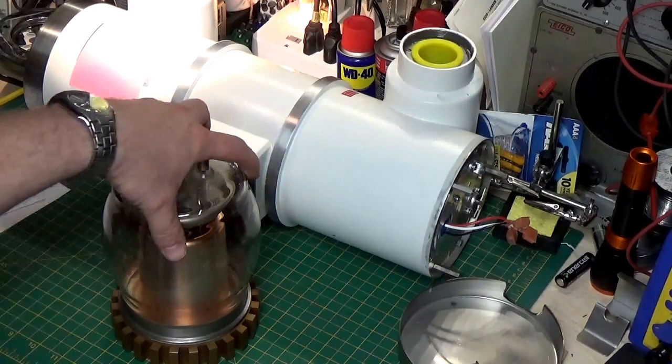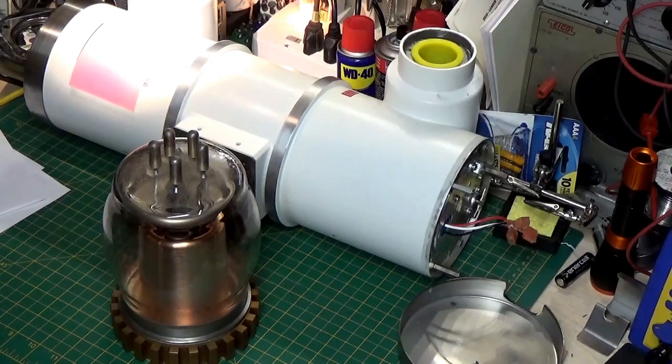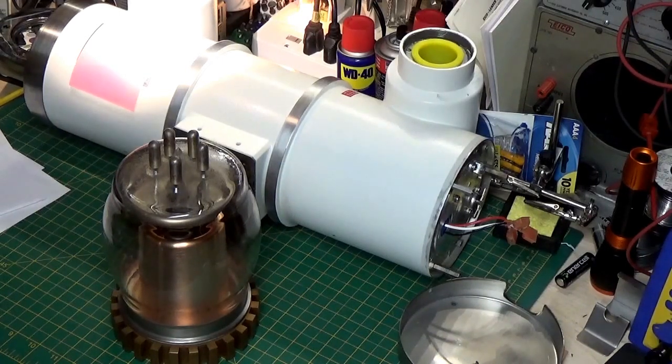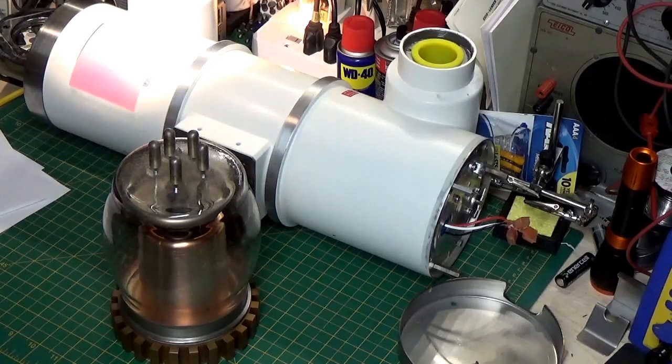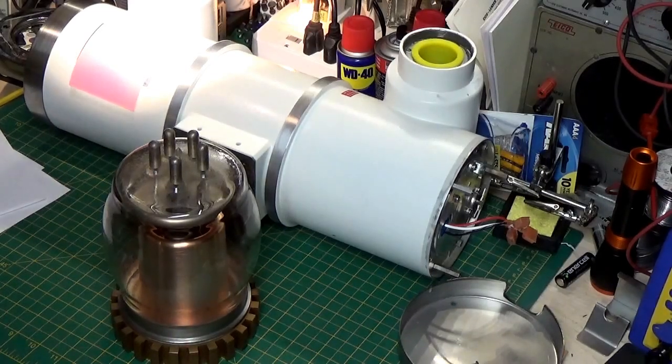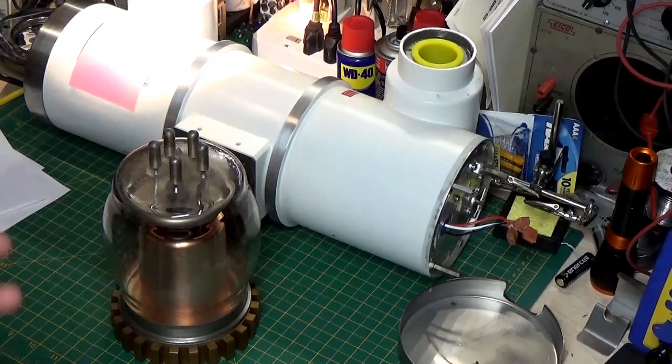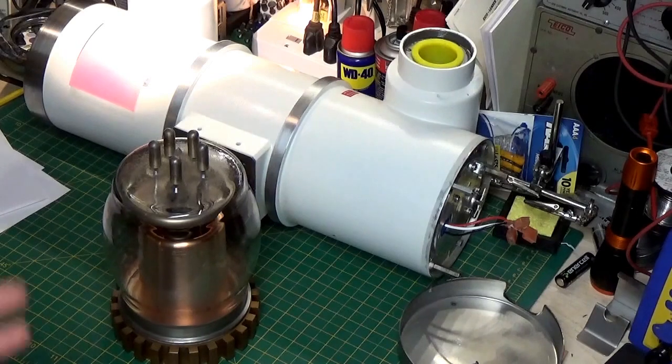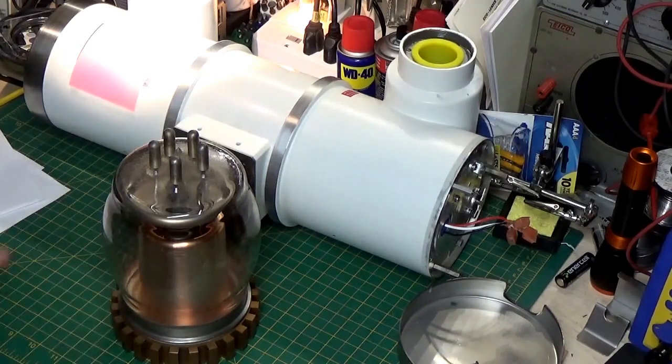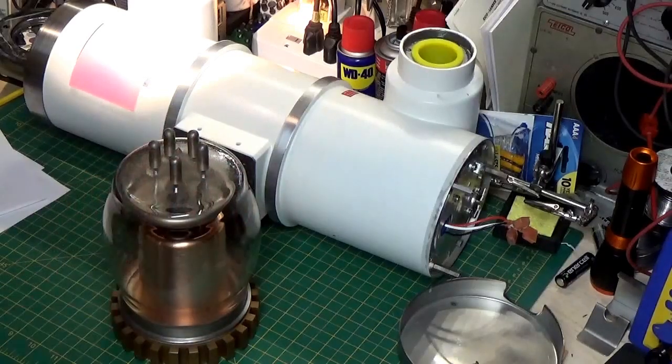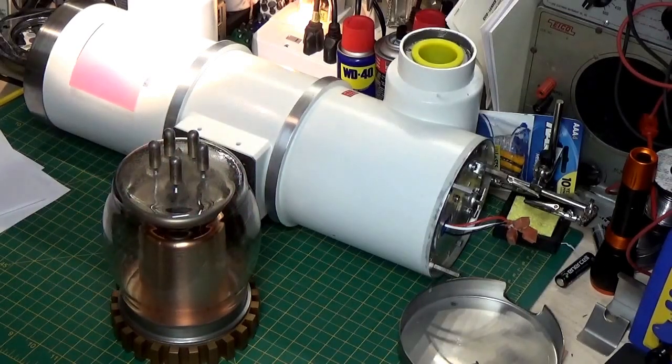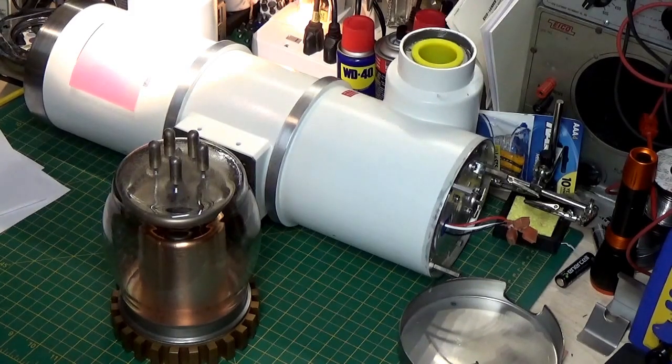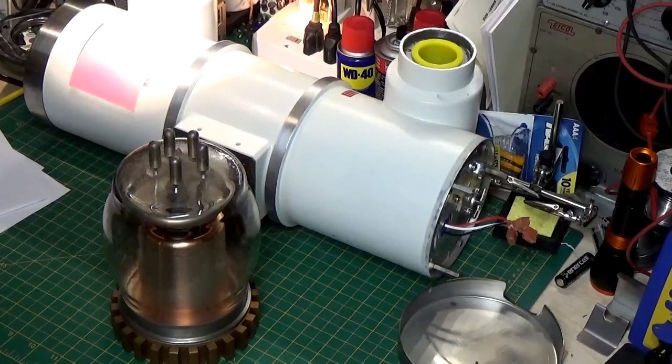This tube would normally be submersed in a great big tank of oil. And that oil is about the size... A tank of oil is about the size of a washing machine. It weighs about a half a ton. And the transformers that drive this are massive. Have over a mile of wire on the secondary winding to produce that high voltage. What I'm showing you here is pretty old technology. These are no longer used. Modern technology, we use IGBTs. And we use high frequency inverters. And we produce our high voltage with high frequency. Much smaller, much more compact, more efficient.